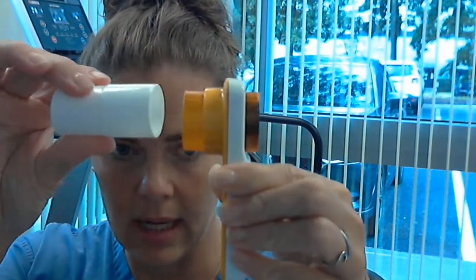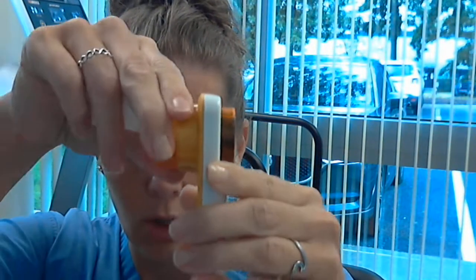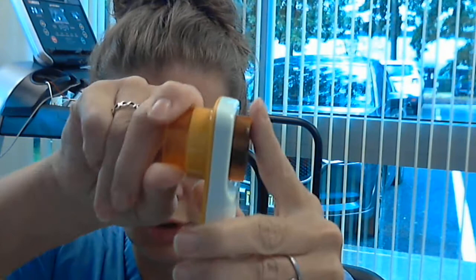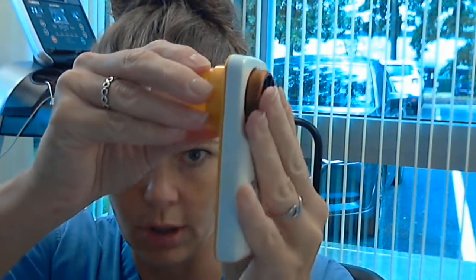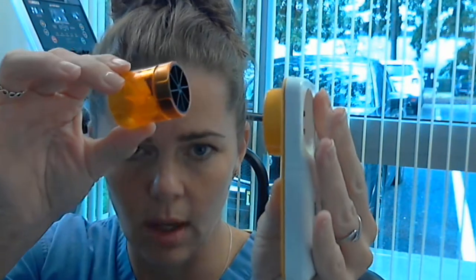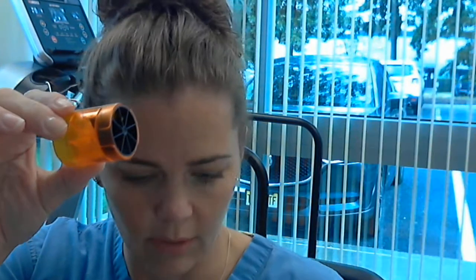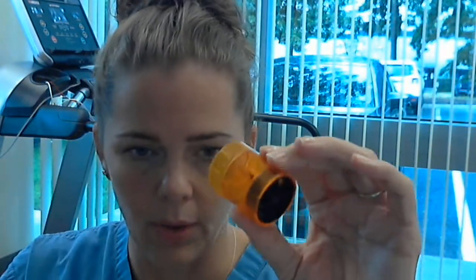So you need to take these things apart. You're going to unscrew the turbine and you're just going to gently push it through with your fingers so it comes out. You wipe this down with a sanitizing wipe, whatever you have at home.